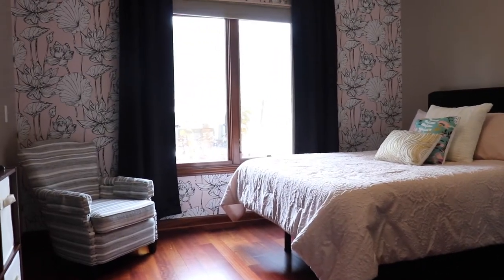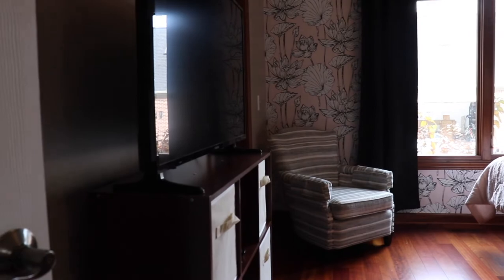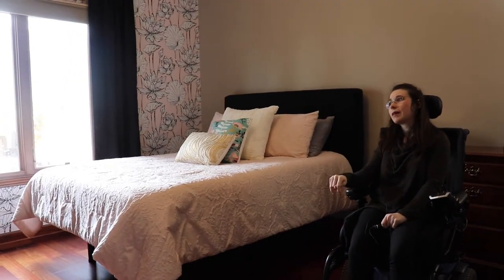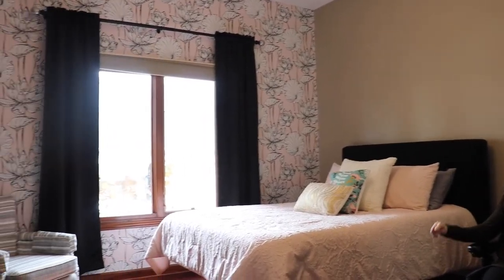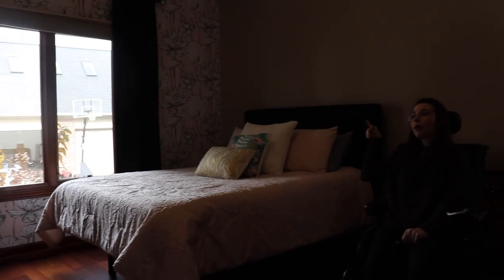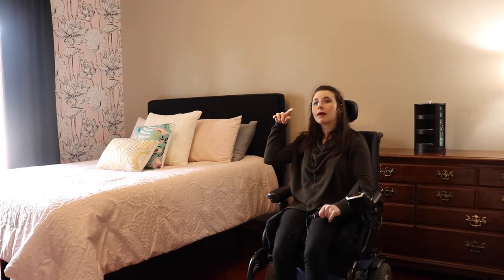The major difference is we no longer have a system up on the ceiling. When we were going to re-paint, I really didn't want to put that system back up again, because it's big and kind of annoying to install — it takes a lot of people. So that brings me to the new system I'm going to show you: a new way of getting me into bed.